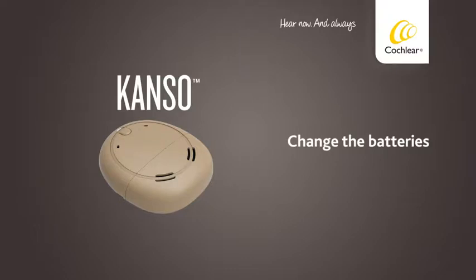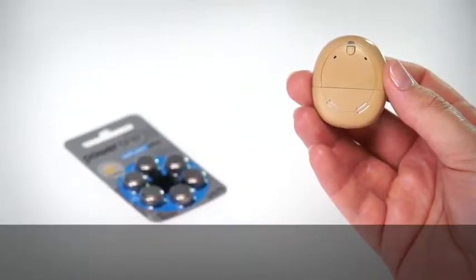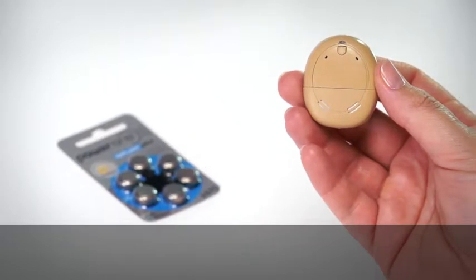Change the batteries. Your Kanso uses two high-power Zinc Air disposable batteries.